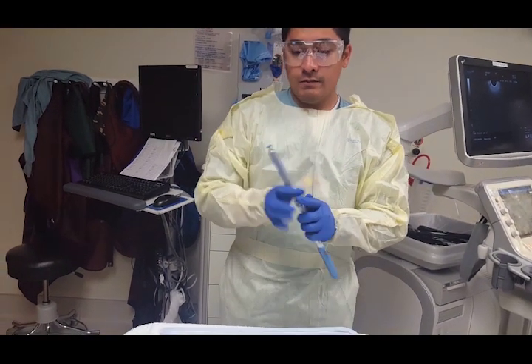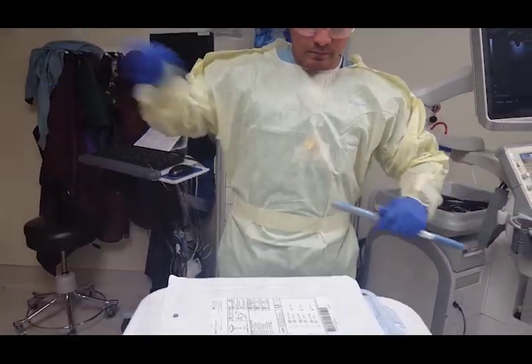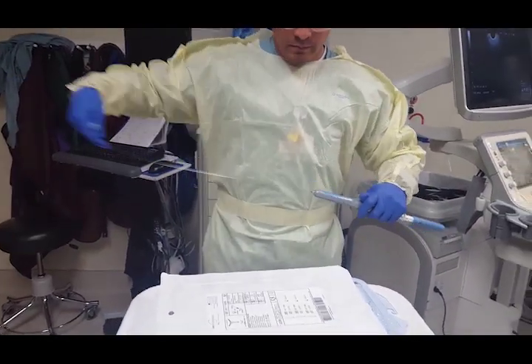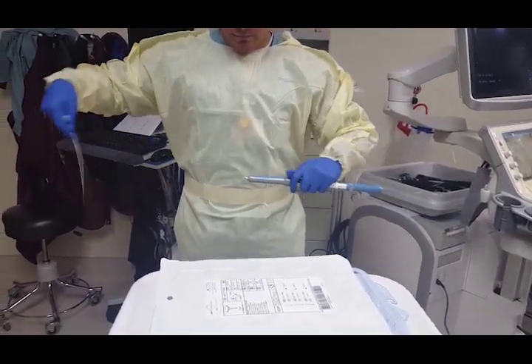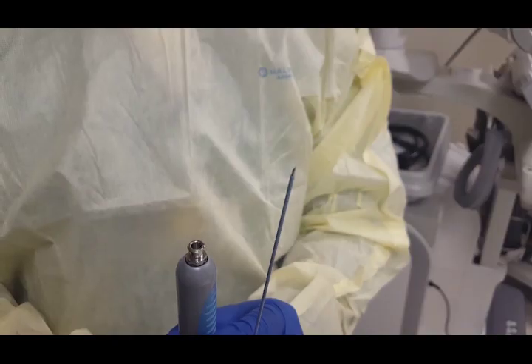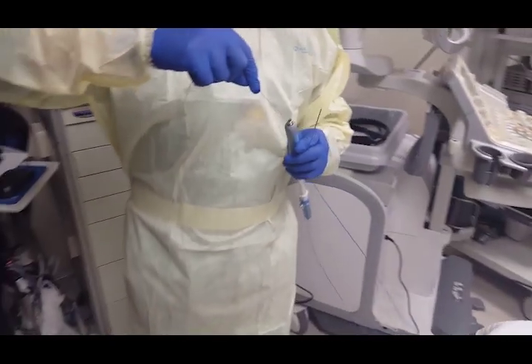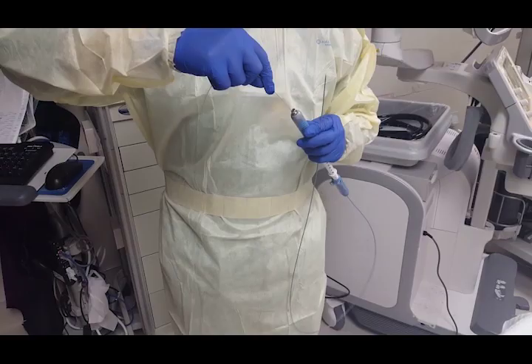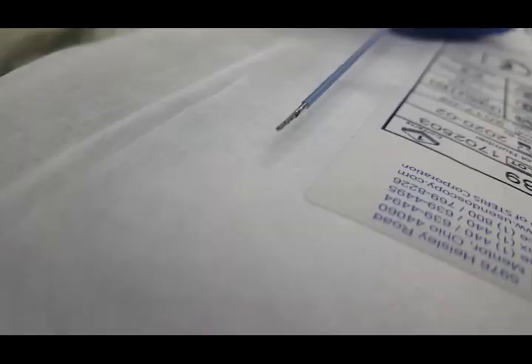Regarding device setup, we prefer to preload the forceps device into the FNA needle. The stylet is removed from the FNA needle. The forceps is then removed from the packaging and loaded into the FNA needle as shown.